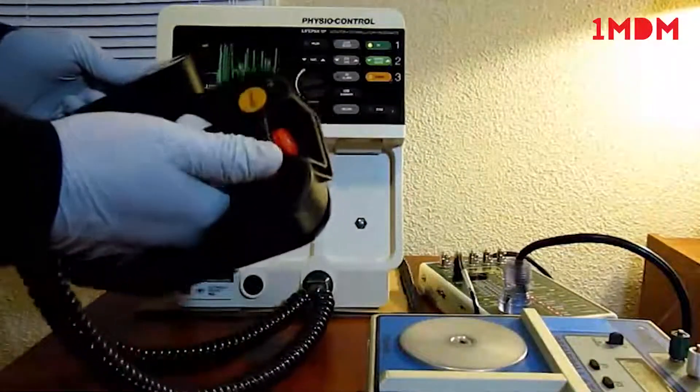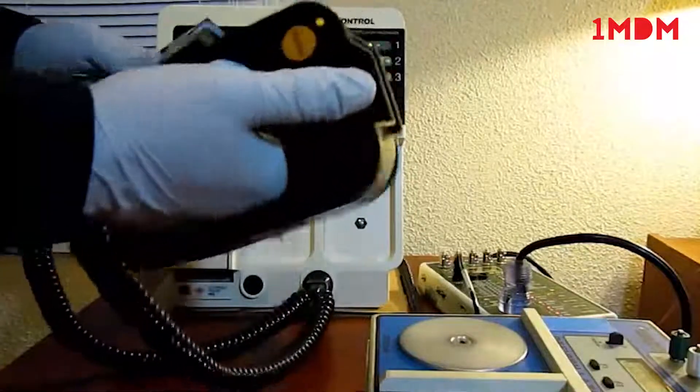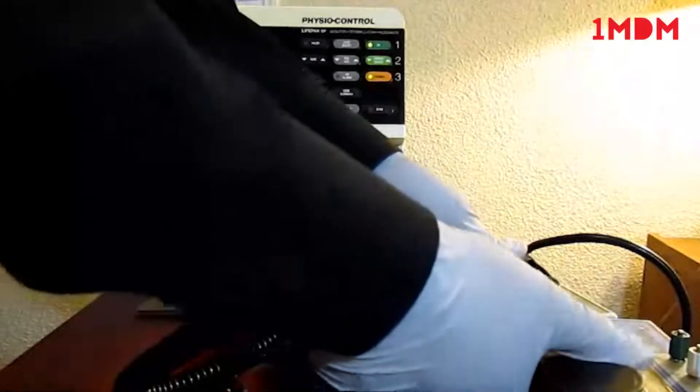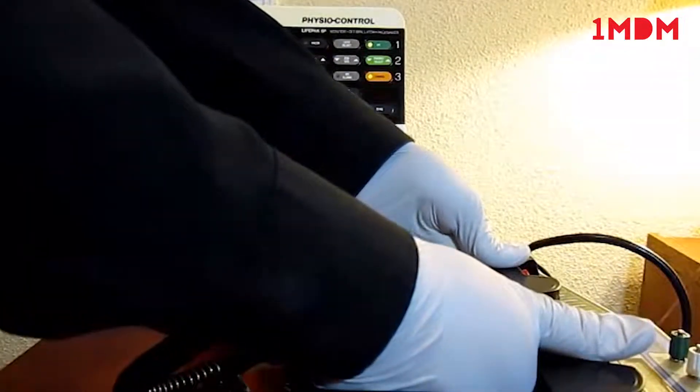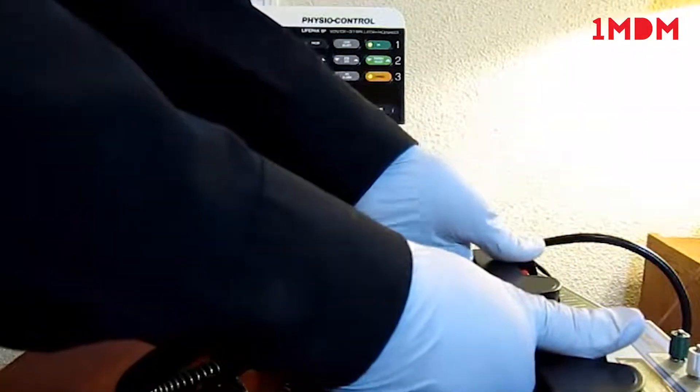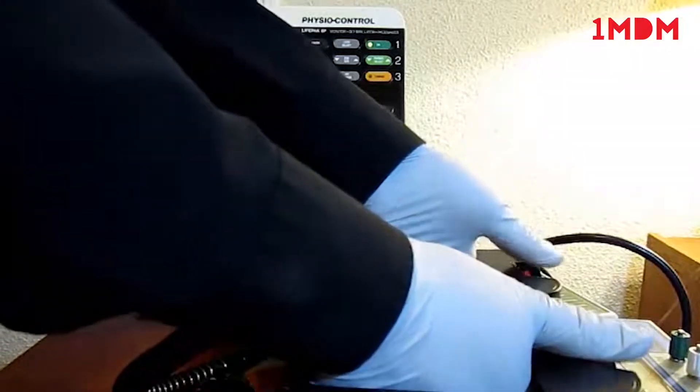We're going to charge. If I press just one button, either the apex or the sternum, it should not go off. I'm going to do the apex. Nothing. Now I'll do the sternum by itself. Nothing. So now when I do both, it should go off.